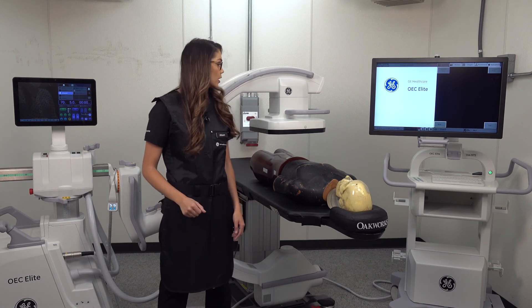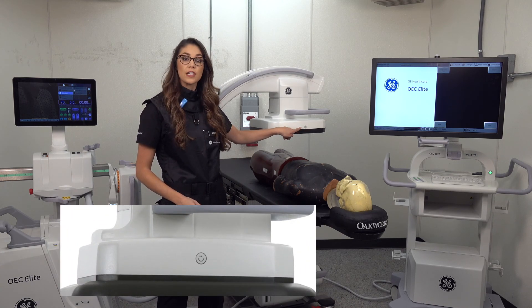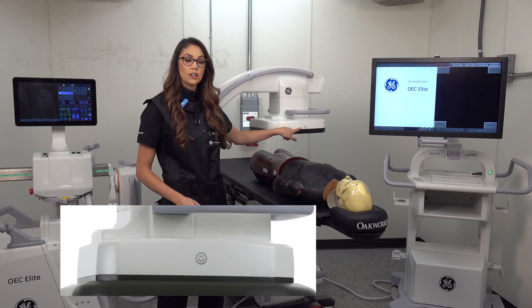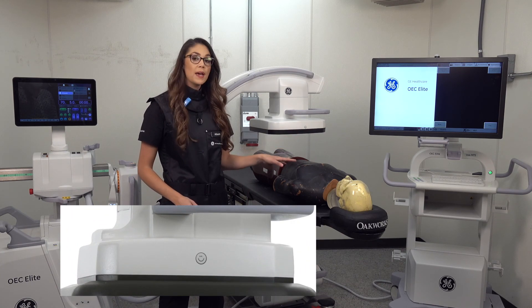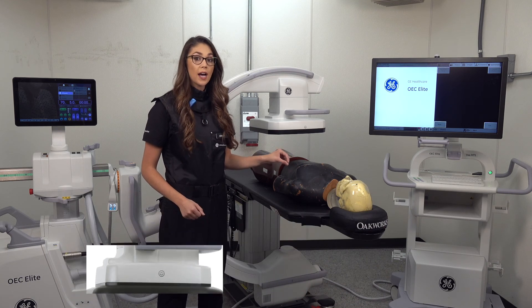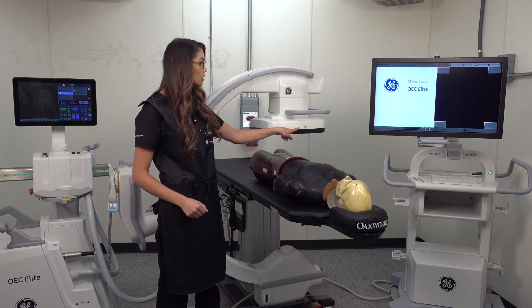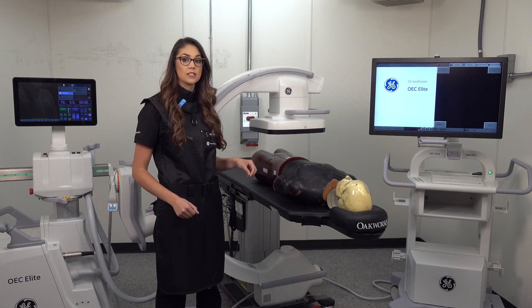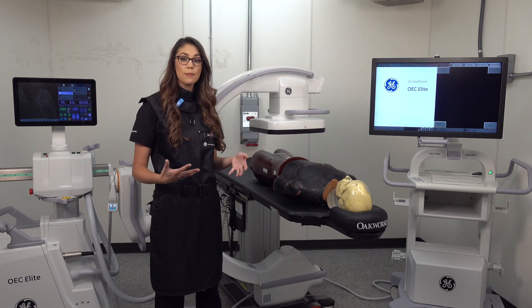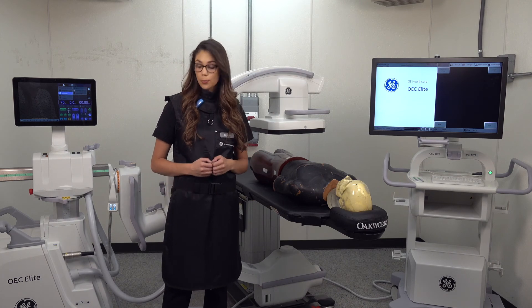The symbol that we're looking for is this little smiley face right here. If my patient is positioned supine with their head looking up towards the smiley face, when I take my first image it should be oriented appropriately.